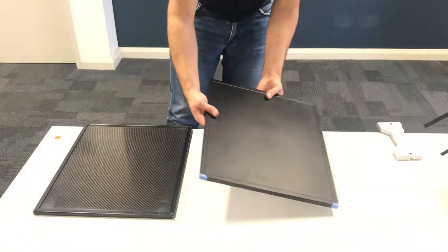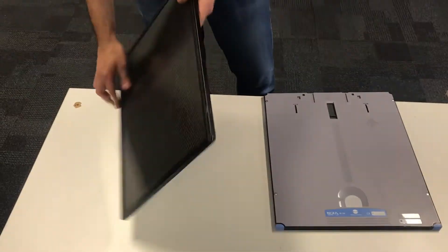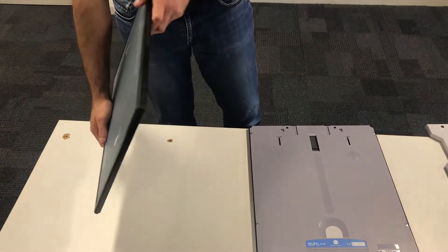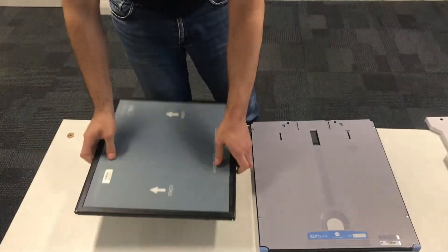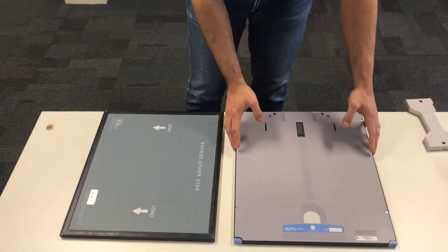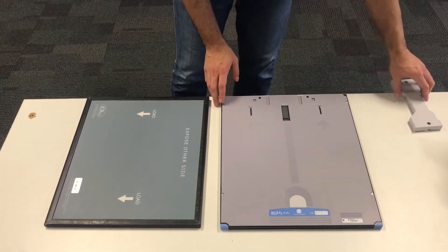The Konica is plastic ABS construction, while the 3600 is an all-metal frame with a carbon fiber structure, so it is more rigid in terms of dropping and bending. So those were the main differences — thanks very much.